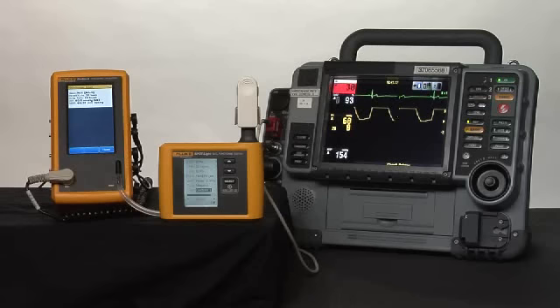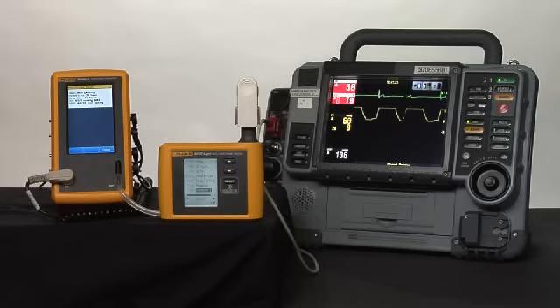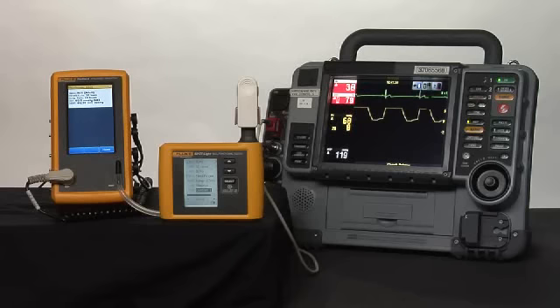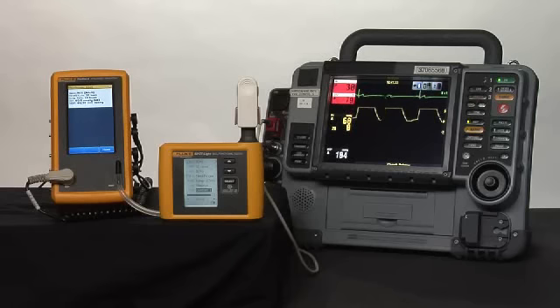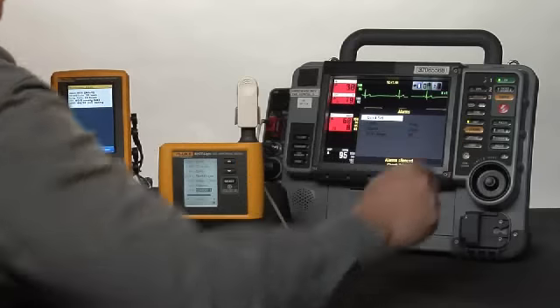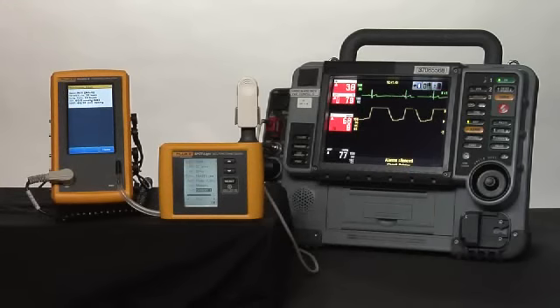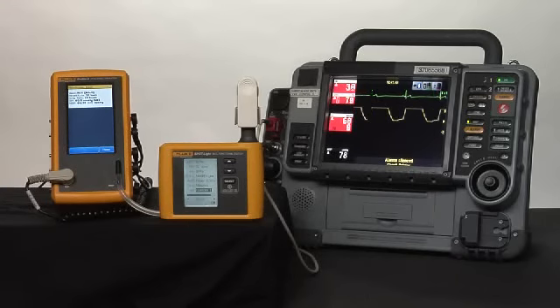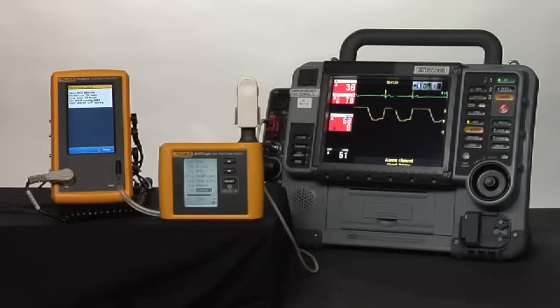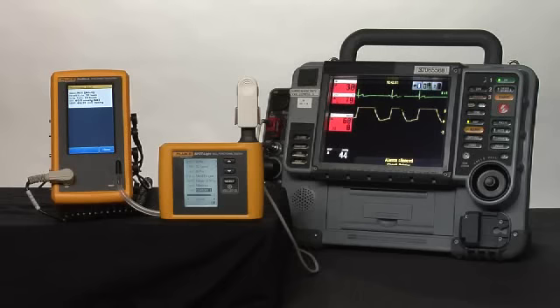We now set off low alarm limits. We're waiting for the NIBP reading to complete. We can compare all the other values, and we'll silence the alarm. We can see that we have a heart rate of 30, a respiratory rate of 10, invasive blood pressure of 60 over 0, and NIBP of 60 over 30. Our oximeter reading is 80% SPO2 and a heart rate of 30.